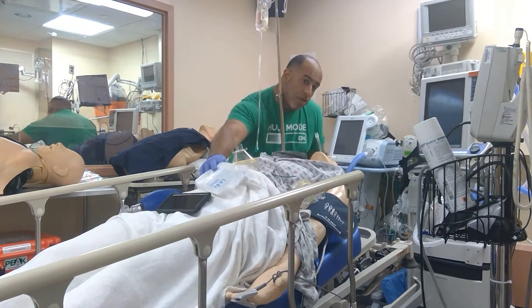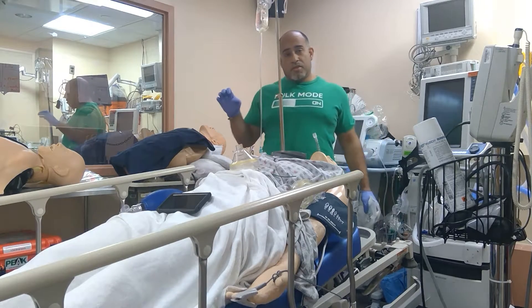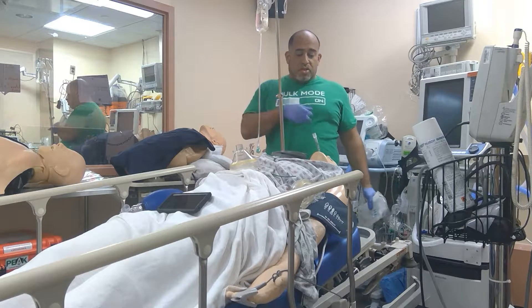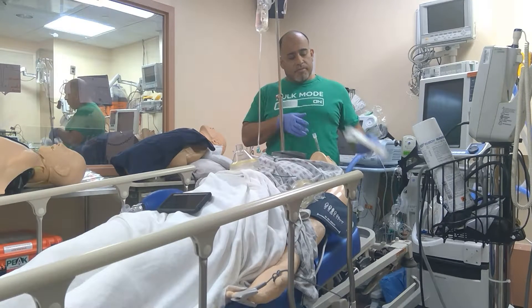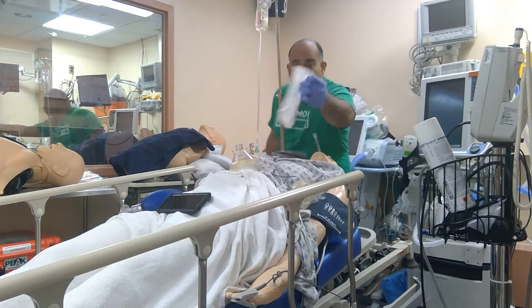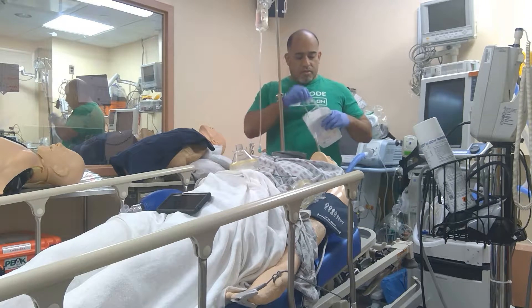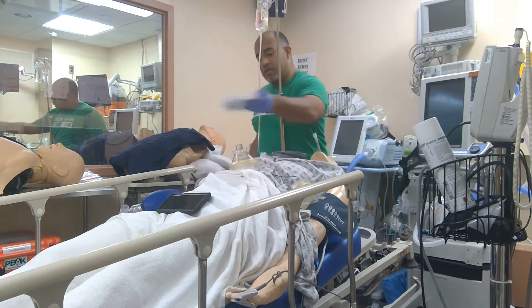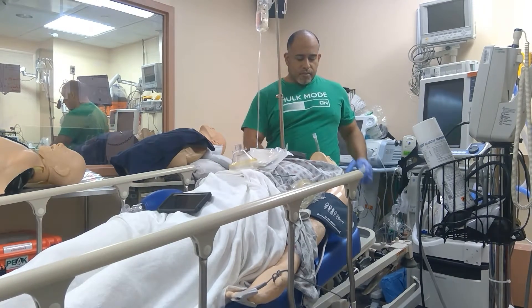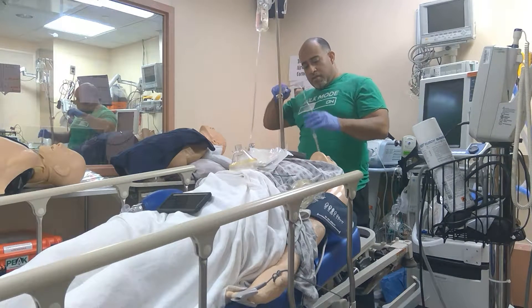So I wait for respiratory to show up and put a slightly complicated piece of plastic contraption on the connection from the ventilator, which allows suctioning while the patient's intubated. Or we pull one of these spaghetti 14-French suction catheters. Connect this to your front suction — same thing — connected to your Yankauer that you already had. Do this whether the sats are up or down.